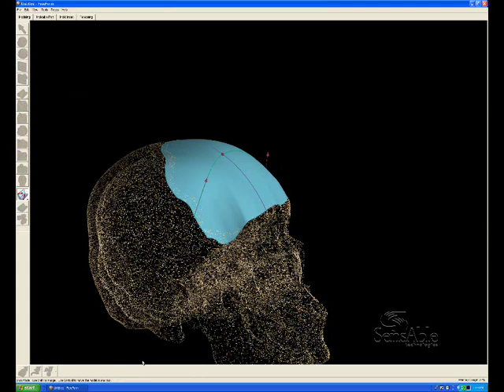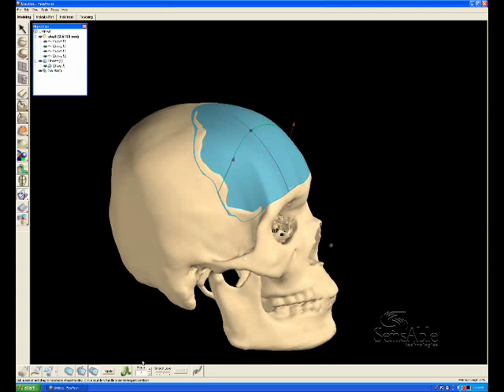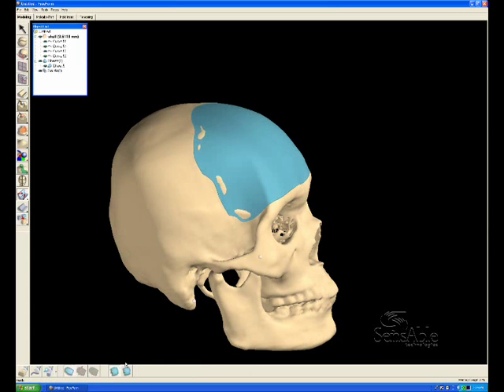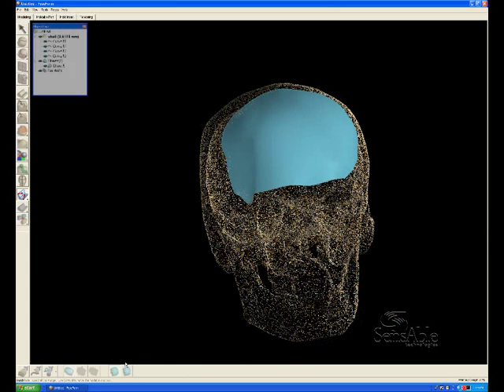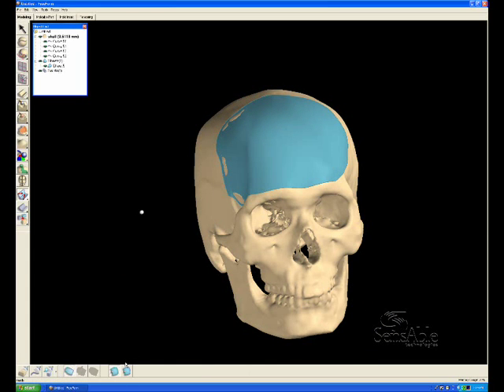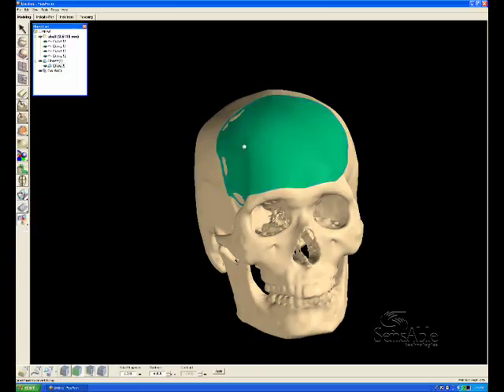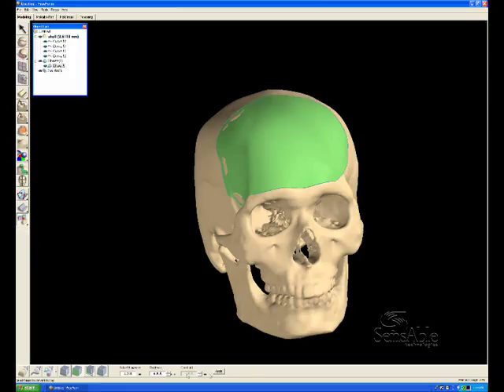Once a proper curvature has been established, we can apply this shape patch, and then thicken the patch into a plug. We can define the thickness as well as the clay coarseness for this plug.